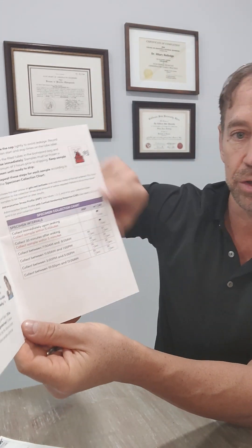Remember that prior to doing any of these samples, you need to do nothing but drink water for an hour. No mouthwash, no chewing gum, no eating food — go through the list, none of those things for an hour. Just drink water. We also recommend that between doing these tubes of saliva you brush your teeth, so that food particles don't end up in your saliva sample and alter the results. It's a good idea between runs to brush your teeth, except for the first and second tube — we'll talk about that in just a second. Just want to have your mouth clean.